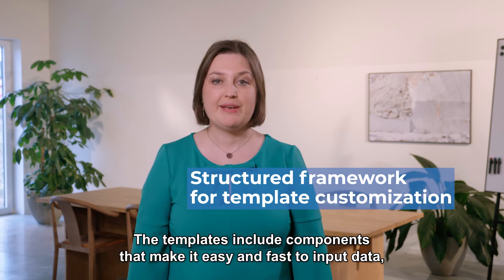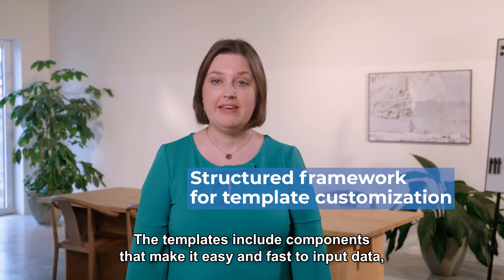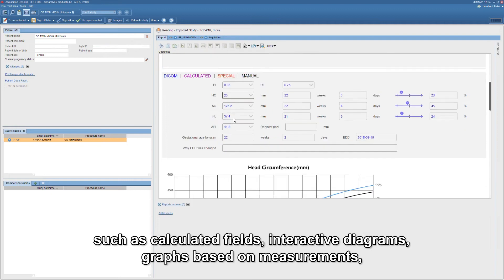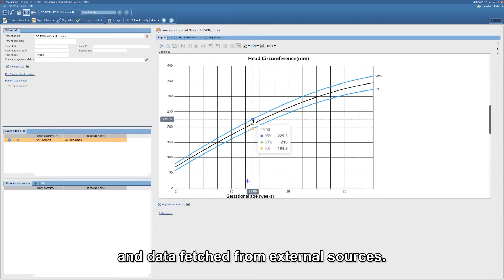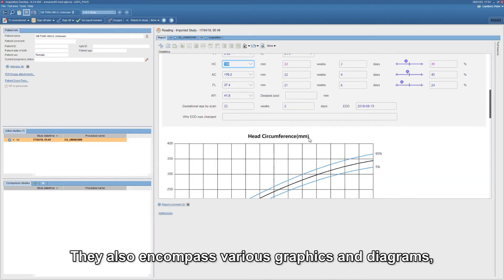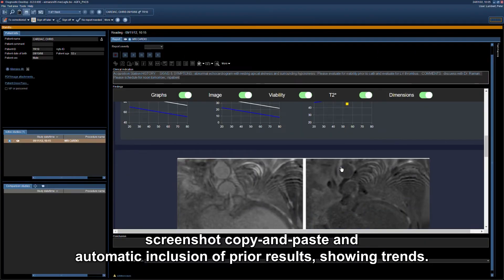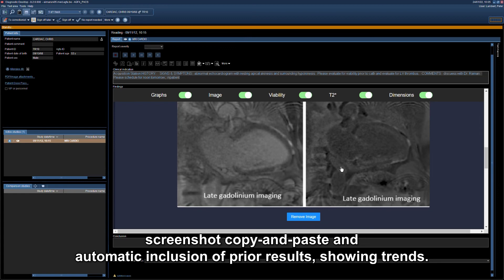With Precision Reporting, reports are created using customized templates. The templates include components that make it easy and fast to input data, such as calculated fields, interactive diagrams, graphs based on measurements and data fetched from external sources. They also encompass various graphics and diagrams, screenshot copy and paste, and automatic inclusion of prior results showing trends.